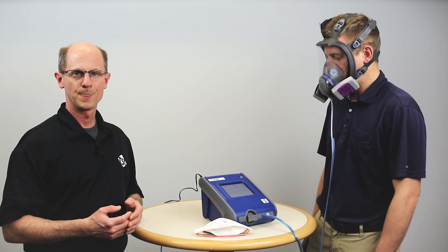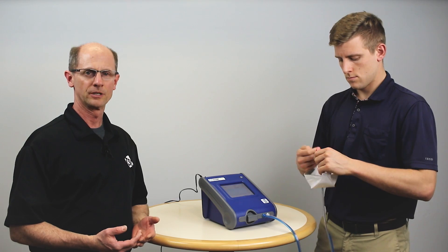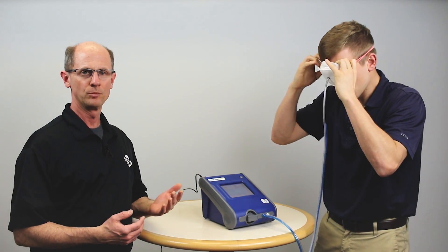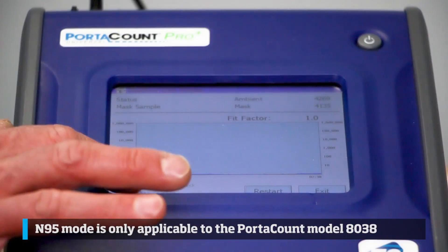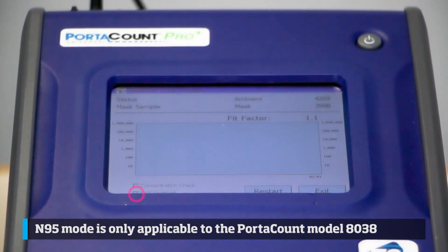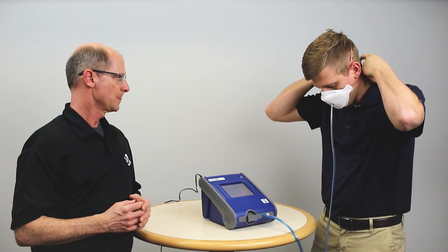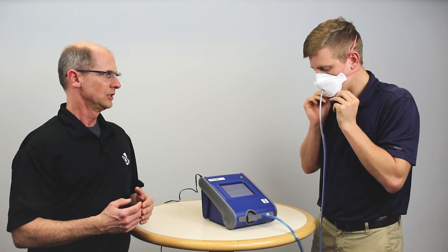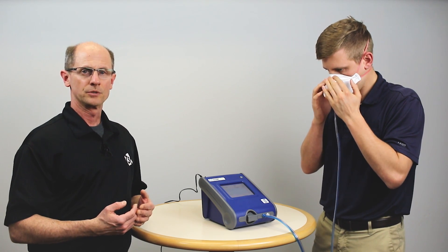Now let's demonstrate this using an N95 filtering facepiece respirator. I connect the clear sample port to the probe on the N95 mask. While Ben puts the mask on, I'm going to check to make sure I have my PortaCount set in N95 enabled mode, and I'm going to hit restart. It's going to do an ambient count, then start doing a mask count and calculate a fit factor — with this type of mask we're looking to achieve a fit factor of 100.